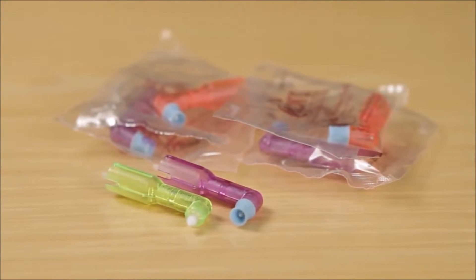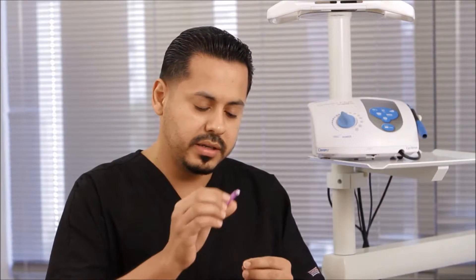My name is Michael Jason Guzman and I am a registered dental hygienist here in the practice. I've been using the 2 Pro Prophyangles for about a good year now, and what I love about them most is that the little cup actually pops off and we can use a little rubber tip for cleaning around the gum lines and around ortho brackets. They're great with ortho patients.